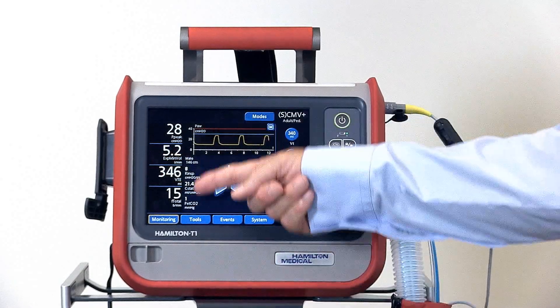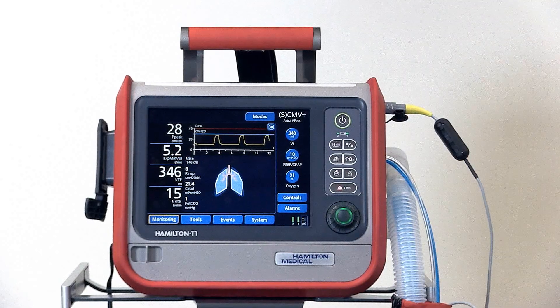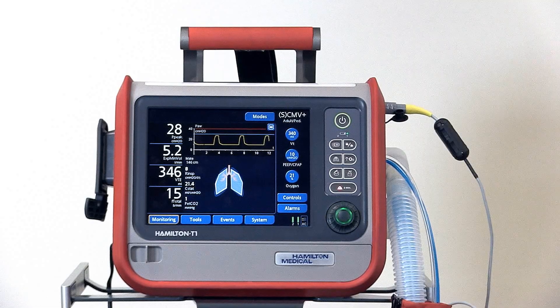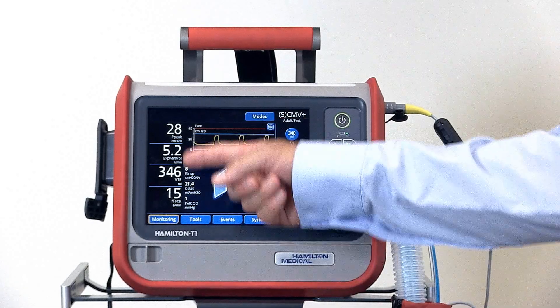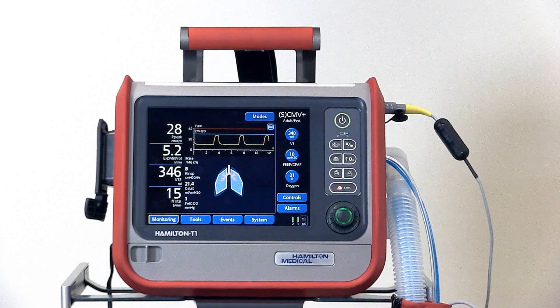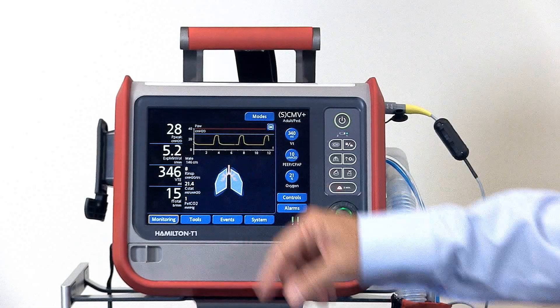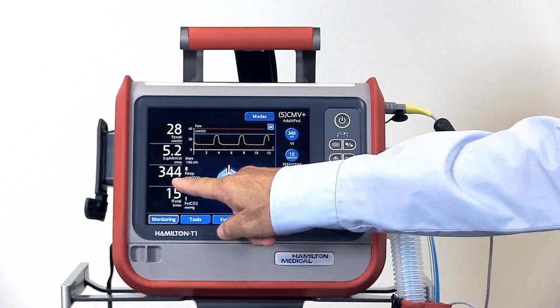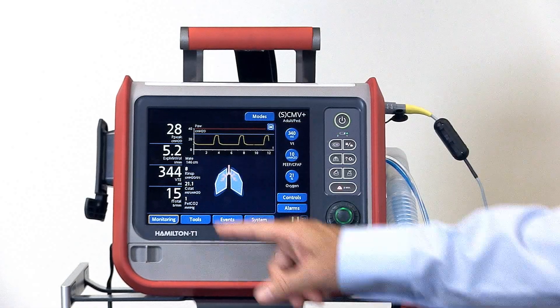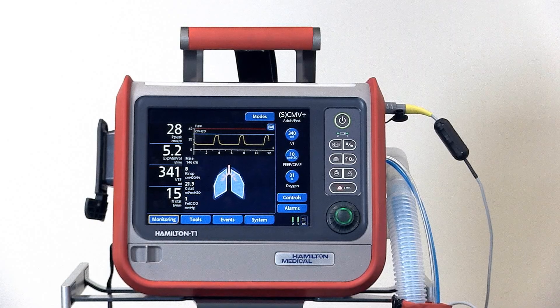On the left side of the screen you'll see the four main monitored parameters. These are configurable. Right now we have displayed peak pressure, expiratory minute volume, exhaled tidal volume, and total frequency.